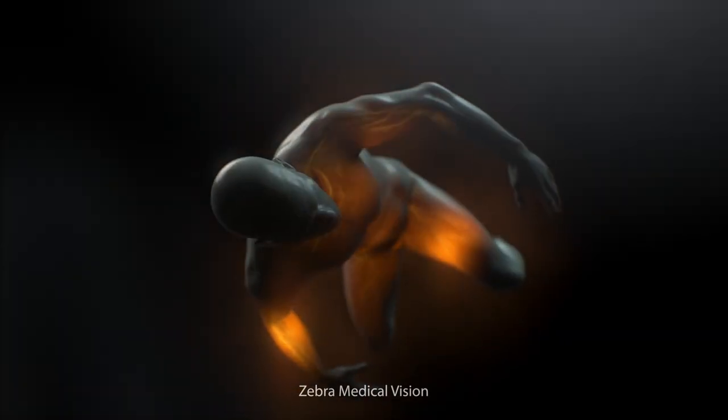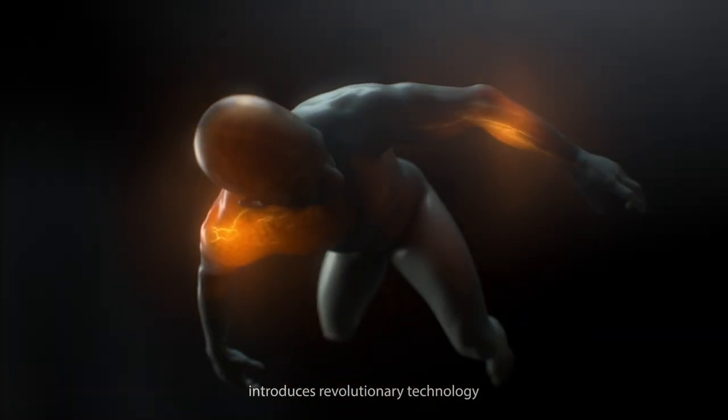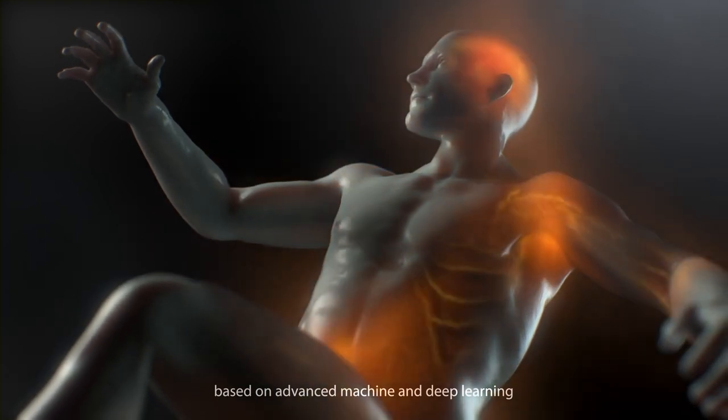Zebra Medical Vision introduces revolutionary technology based on advanced machine and deep learning.